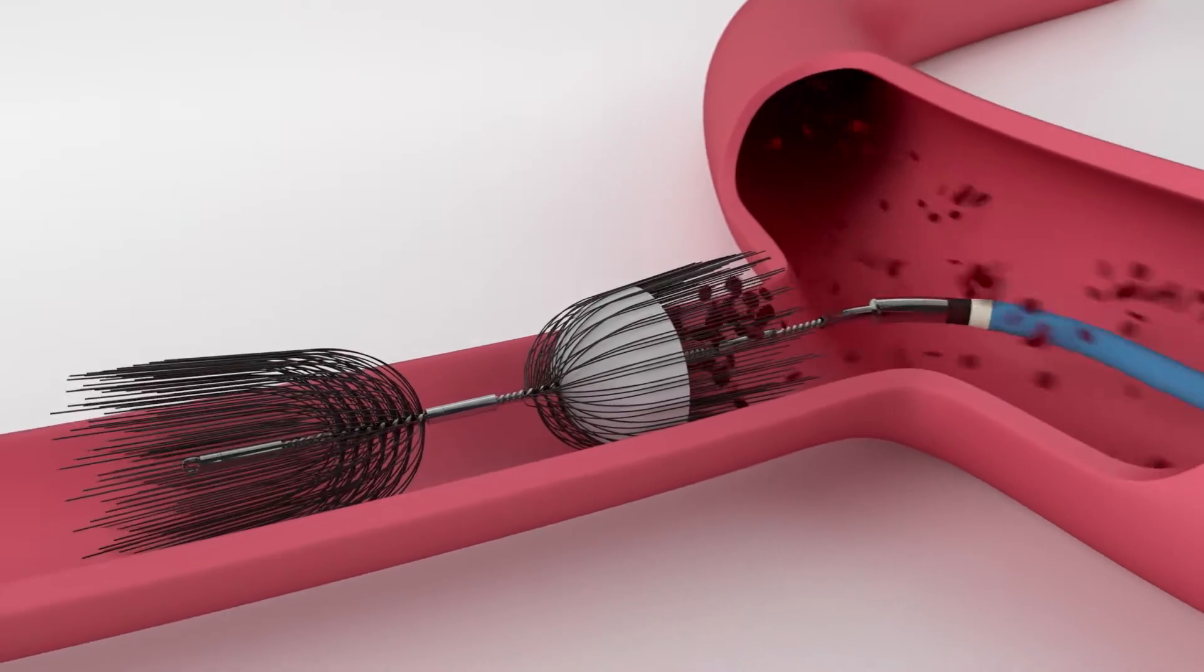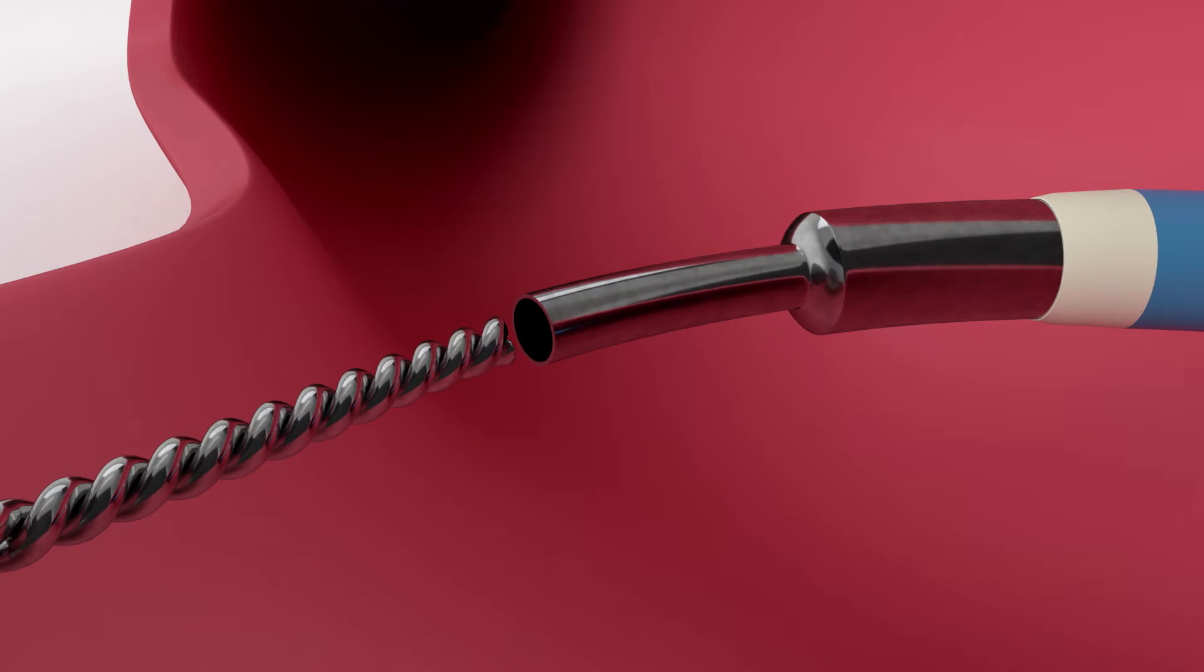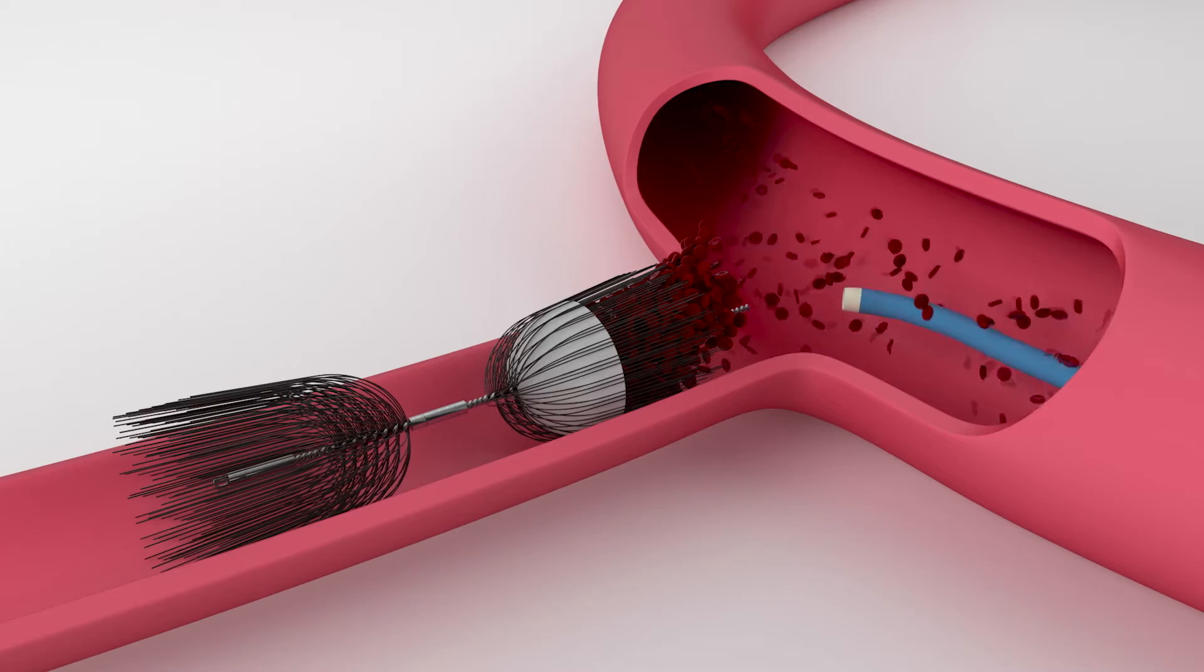adaptive sizing, three radiopaque marker bands for visualization under fluoroscopy, the efficiency of a detachment screw, and efficient occlusion.